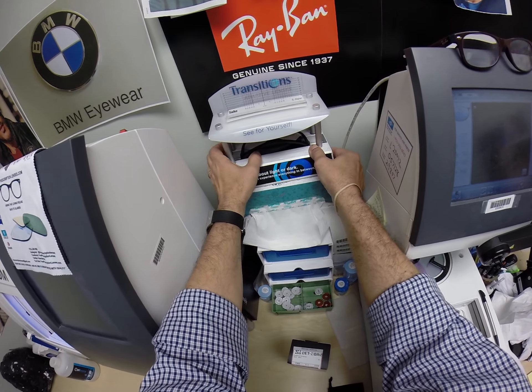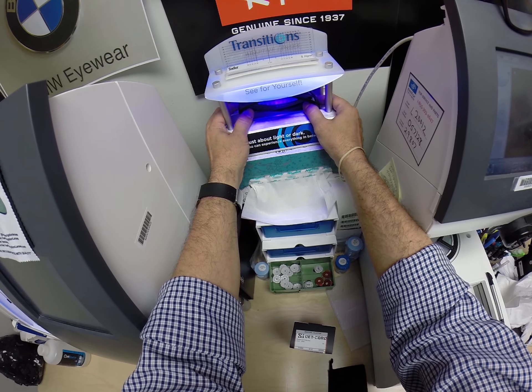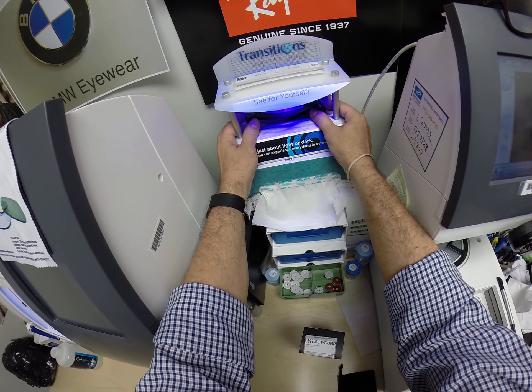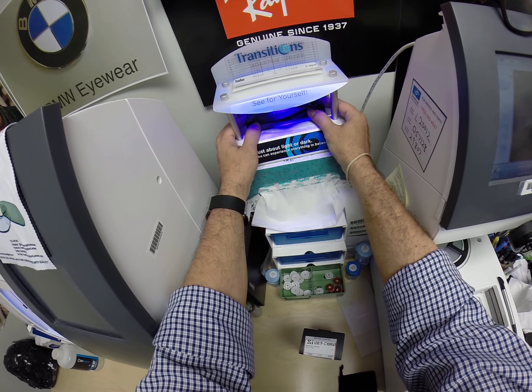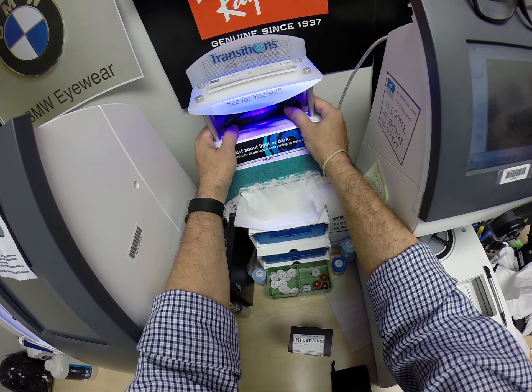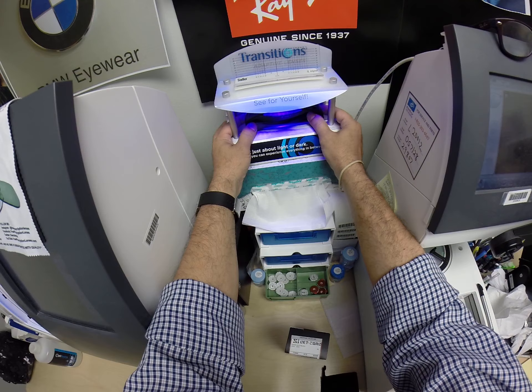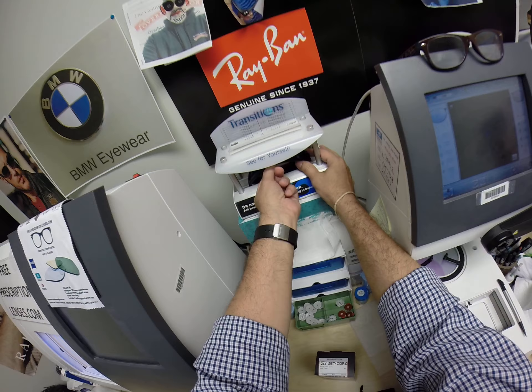As you can see, it takes about 30 to 45 seconds for photochromic transition lenses to darken, and a little bit longer when you come back inside — 45 seconds to a minute to a minute 15. Now, this is important: all photochromic transition lenses will get dark on day one and continue to darken every day for the first couple of weeks when exposed to the sun. After that, they will work for years at maximum performance. The only time they won't work is if you're behind the windshield of a car — your windshield absorbs the sun's harmful ultraviolet rays, which is why they don't turn dark in a car.